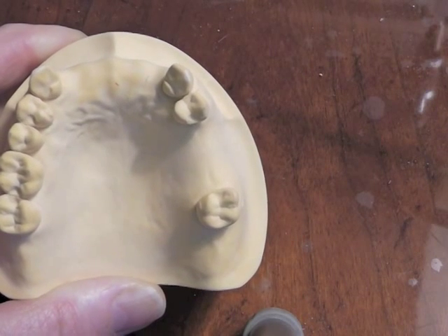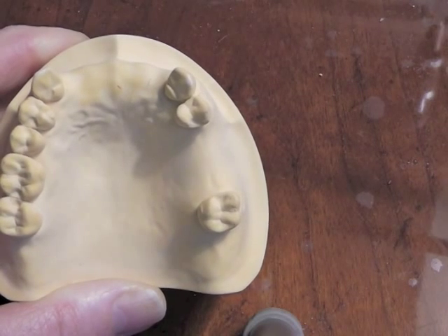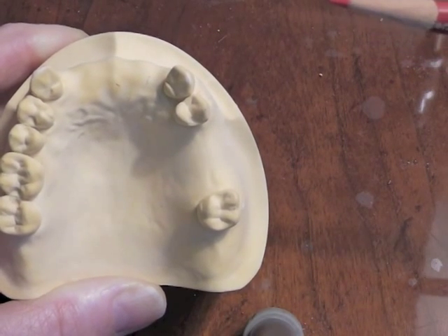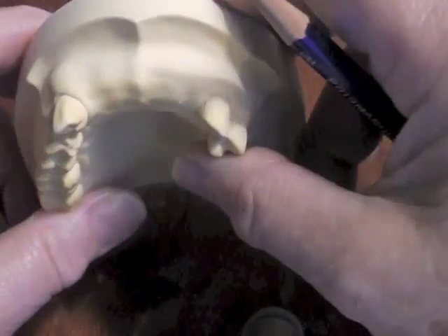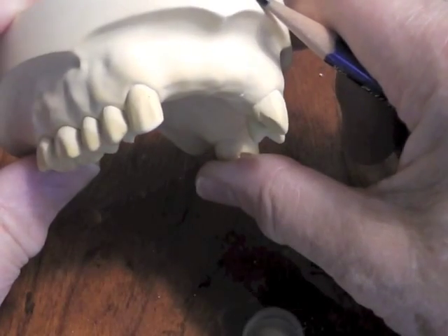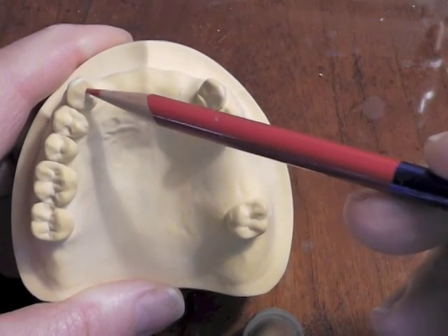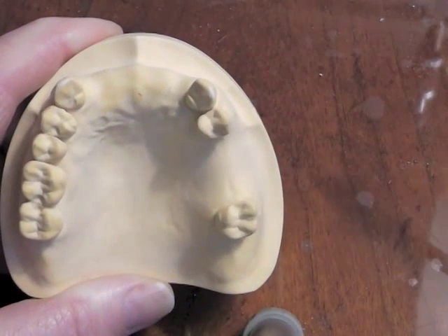Those two rests are going to be cingulum rests on the maxillary canines. We did a Kennedy Class IV that had a disto-incisal angle rest because on the mandibular canine there's very little cingulum or thickness of enamel in that area. But on the maxillary canines, we don't want to do a disto-incisal angle rest because it would not be very aesthetic when the patient smiled and you were looking at them from the side. So on the maxillary canines, because we have nice thick enamel and a natural cingulum, we will place cingulum rests.